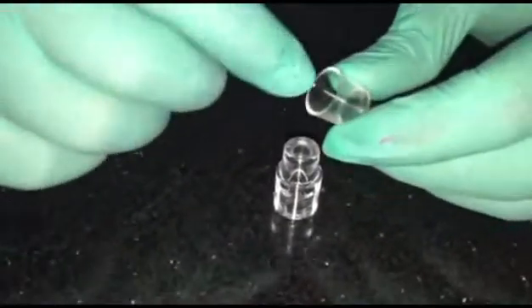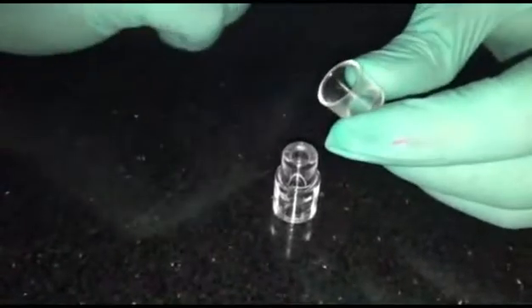In order to create an illusion of what actually happens when you are loading a crown and placing it on top of the abutment tooth, instead of luting cement, what I'm going to use is light body because it has a similar flow consistency.